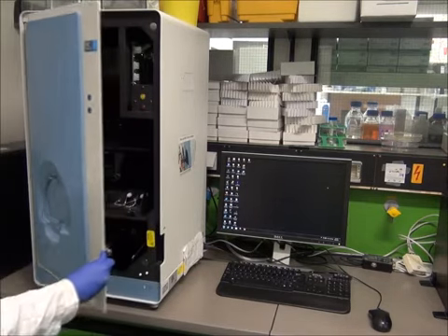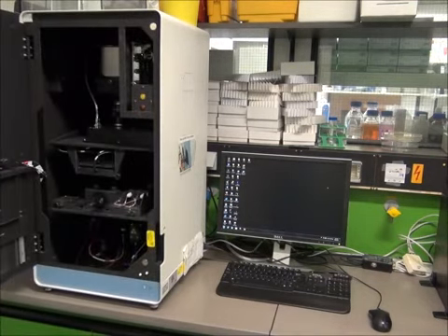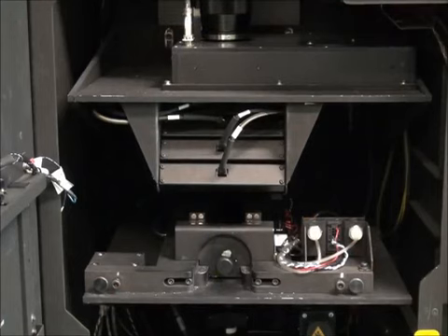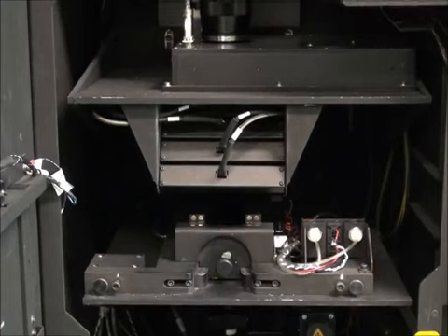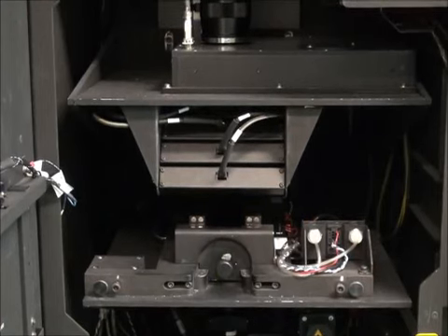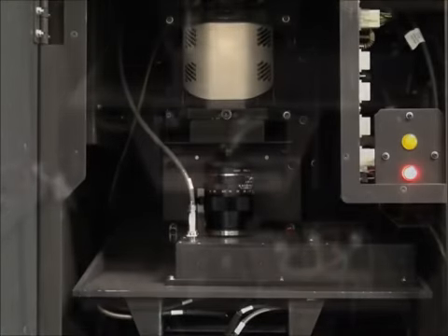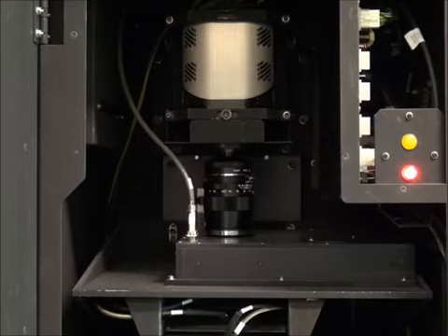Now the front panel is opened to show the inside of the FMT. At the bottom is a laser mounted on a 2D servo. The laser emits light into the mouse, which is held in a partially transparent mousebed. Above the mousebed is an array of LEDs as an alternative light source, which allows the FMT to operate as a regular reflectance imaging device. A filter wheel is mounted below the lens, which captures the light for the detector on top of the device.